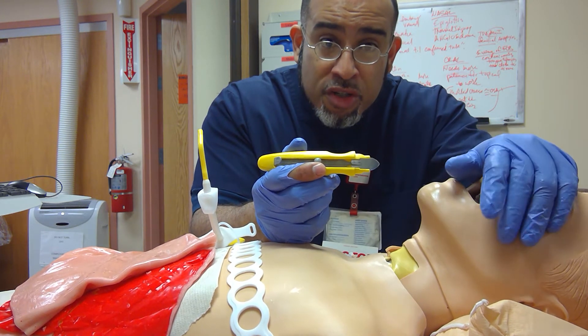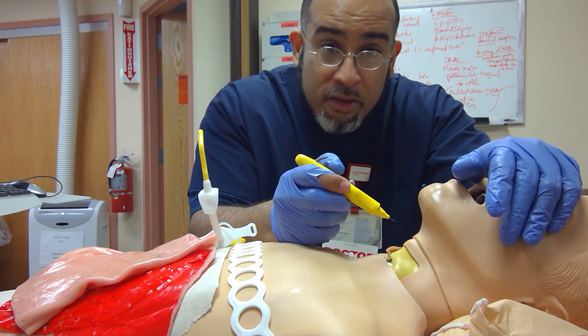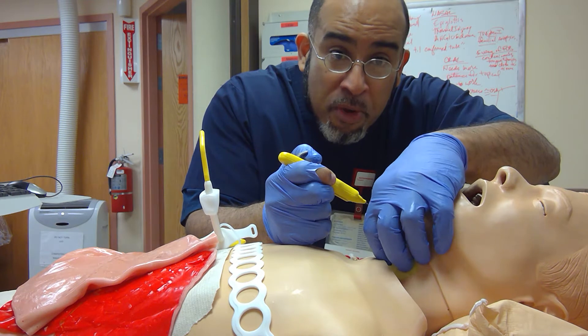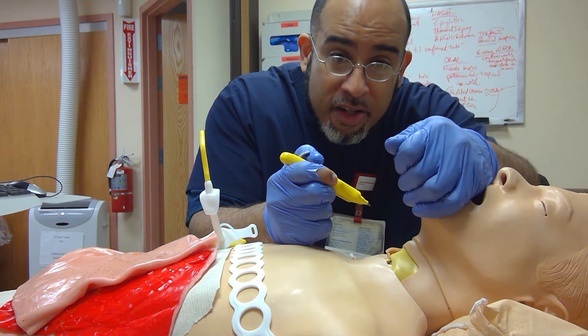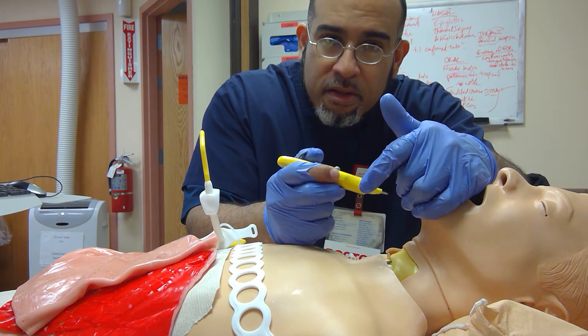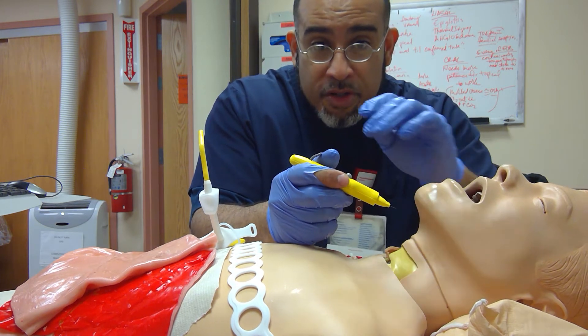Now I'll teach you what's traditionally taught. When you put it in, the hook goes attached to the prominent — very prominent — thyroid cartilage, and to keep the hole, the track, in place. It'll make more sense when I show you the demonstration.